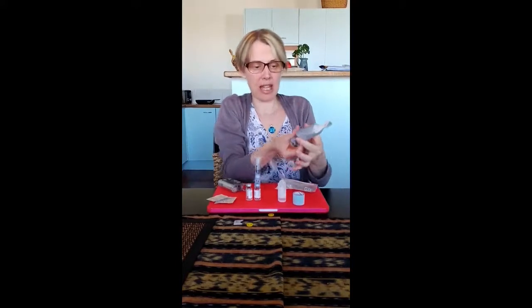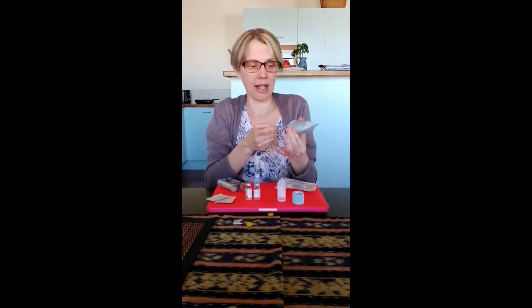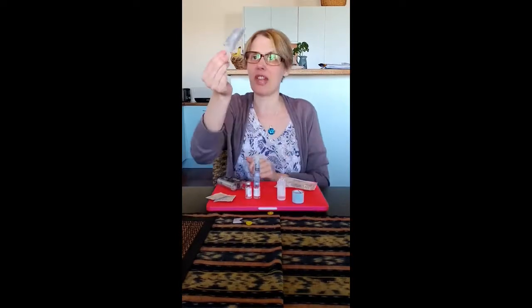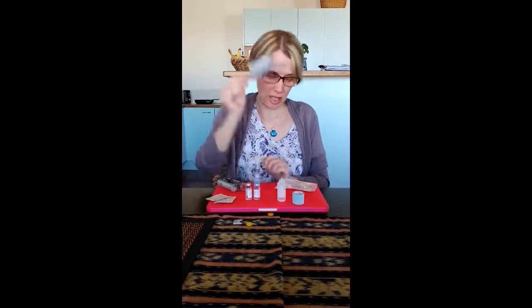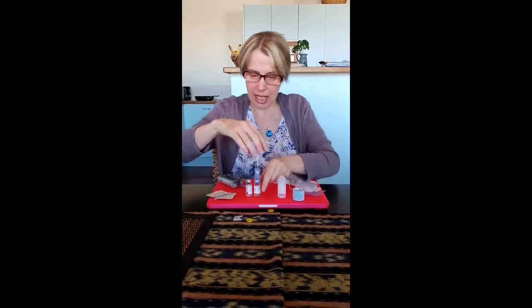Today I do need to change the tubing, so I'll prepare the set — I've already taken the main plastic off. I hold it and pull back, then that little cap will fall off. That is now ready for insertion into my body, and now I need to prepare the tubing.